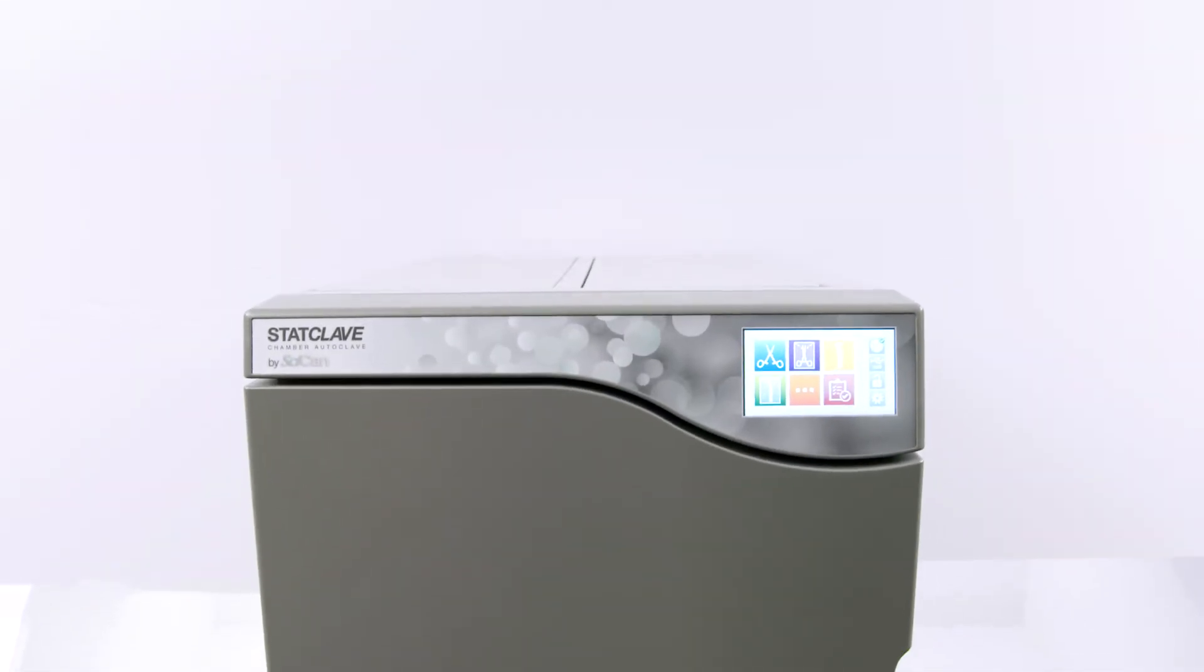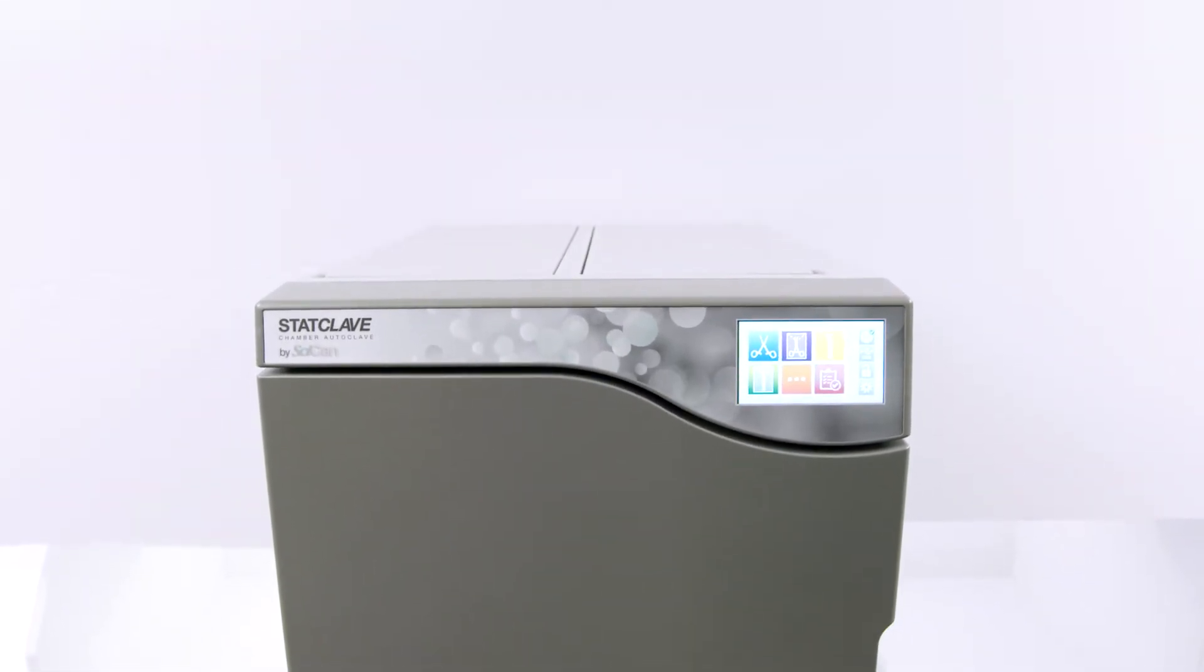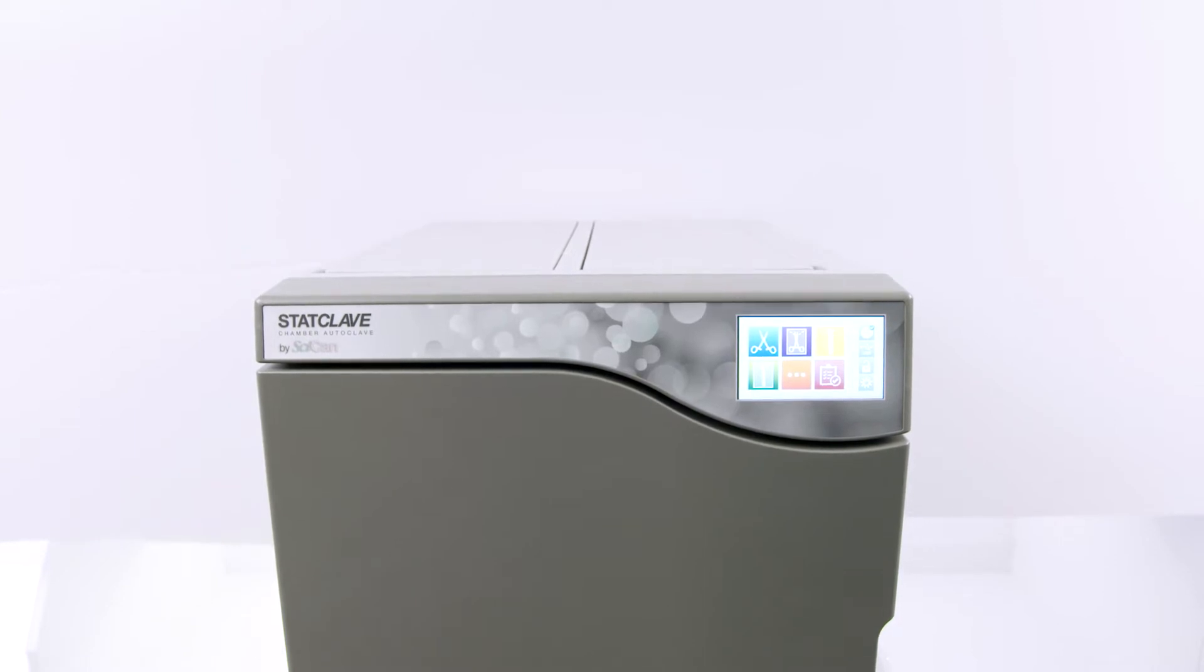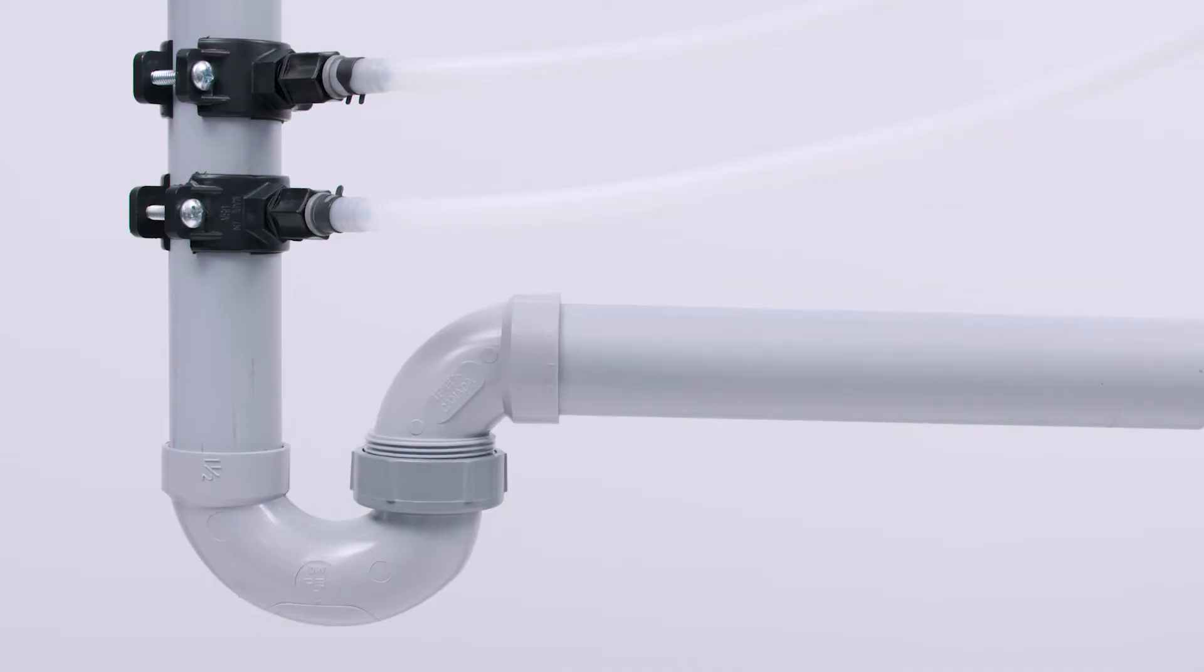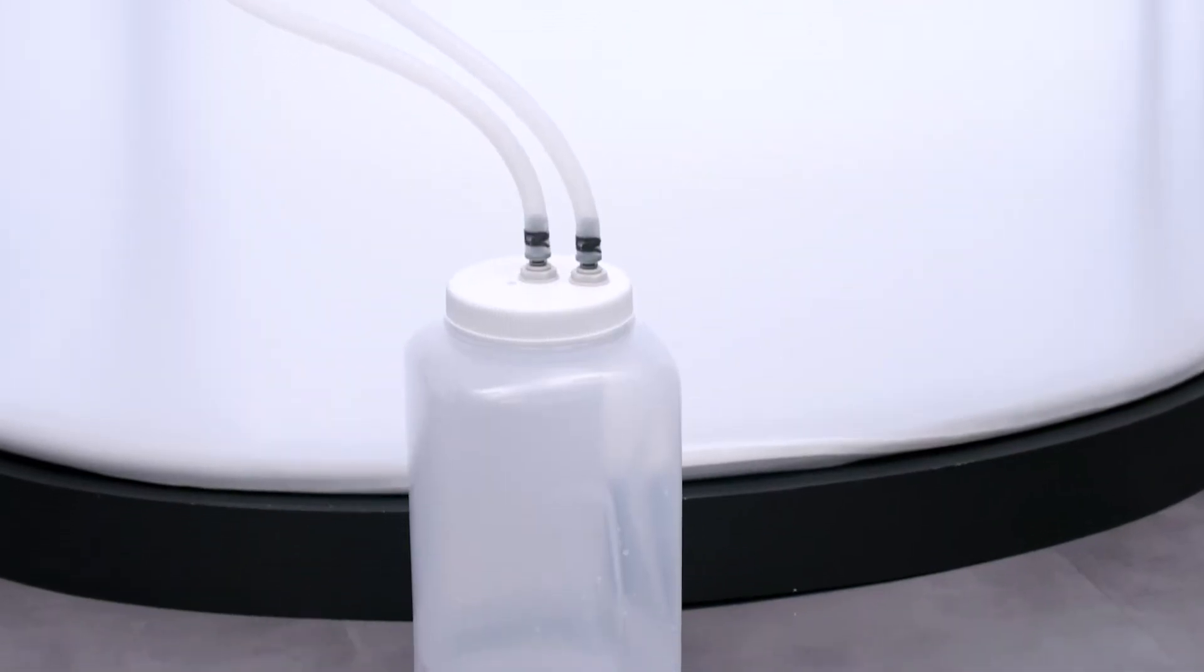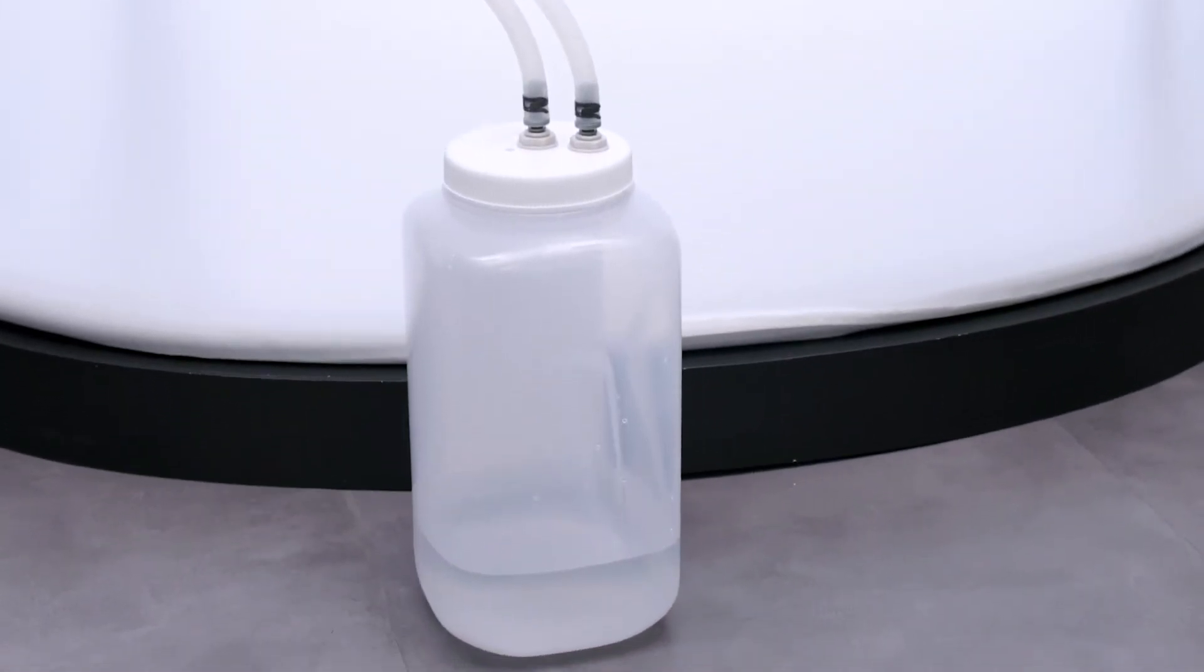The StatClave has two reservoirs, but the Venturi reservoir is not for waste water accumulation. Instead, the unit exhausts its waste to either a direct-to-drain system or a waste water bottle.